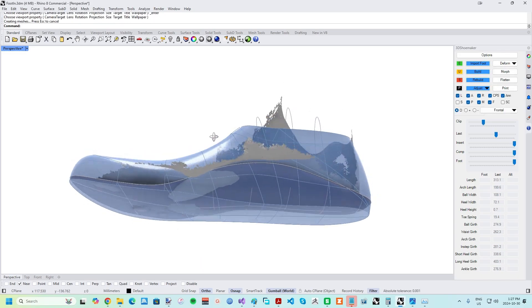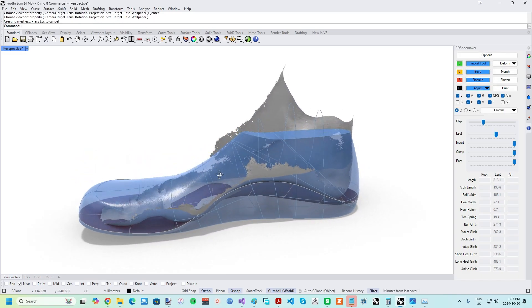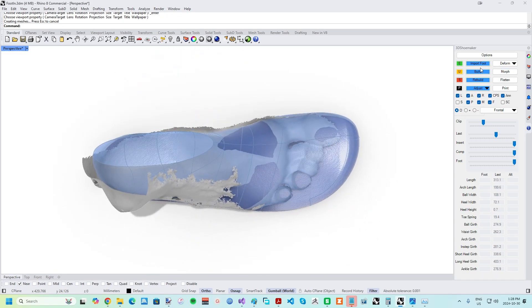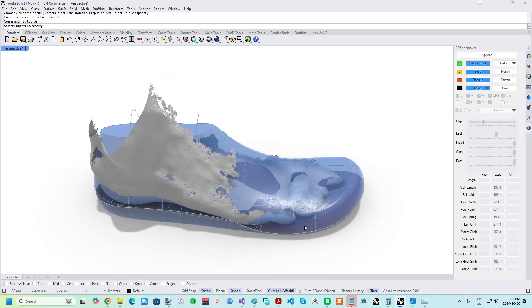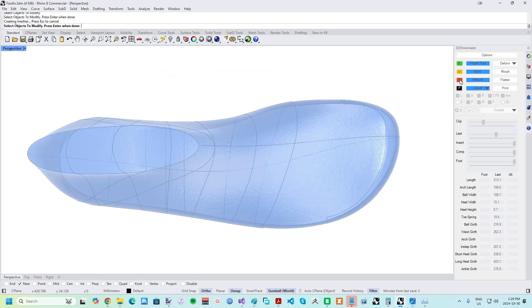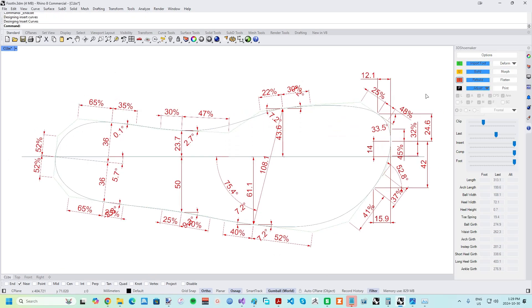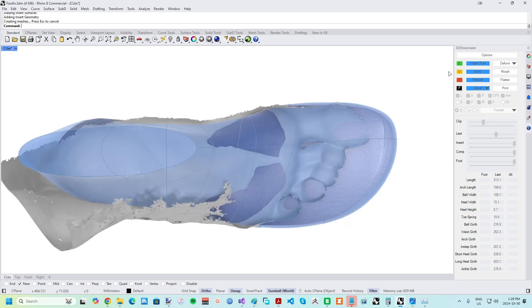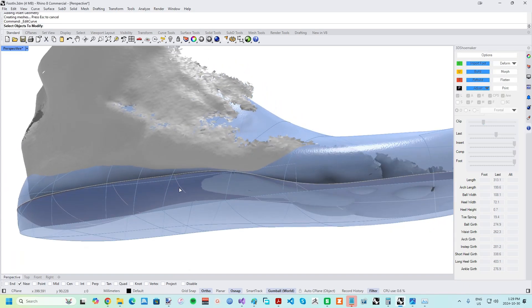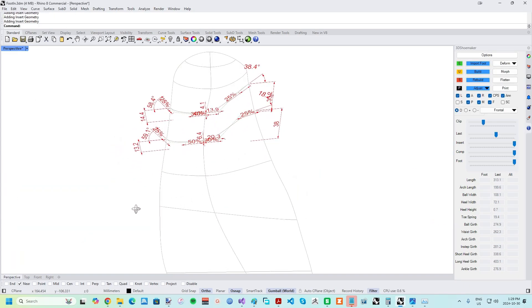The shoe last template provides the boundary of the orthotic and should have a similar shape to the intended footwear for the orthotic. You can always parametrically edit the shoe last, as I have shown in other tutorials, and re-save as a new template to save time in the future.